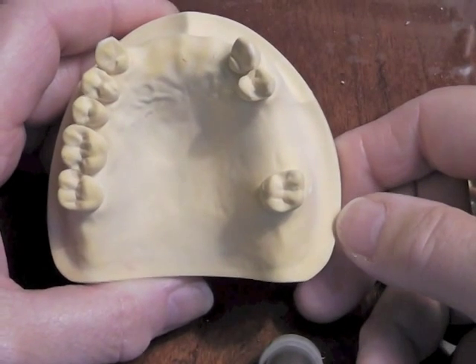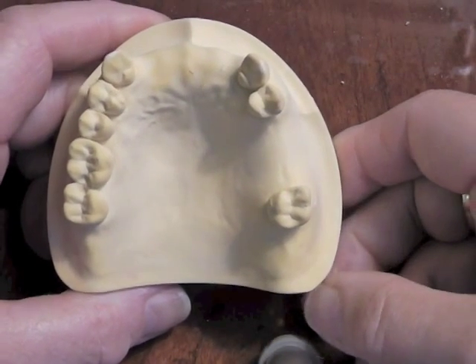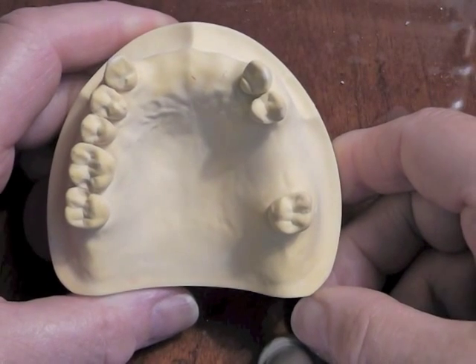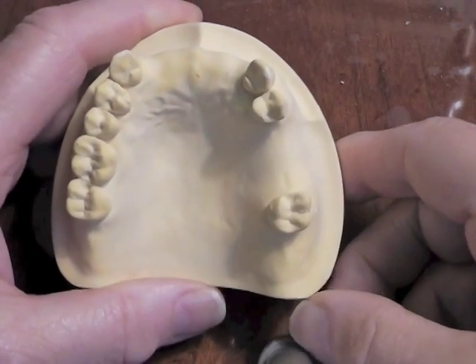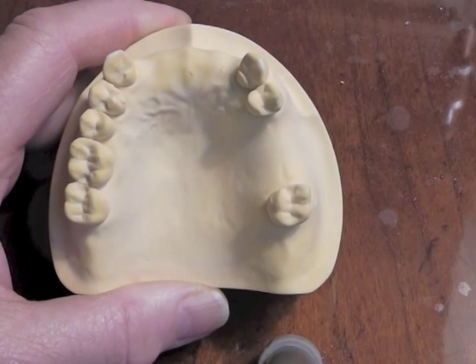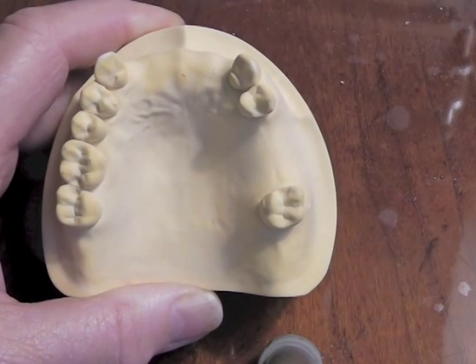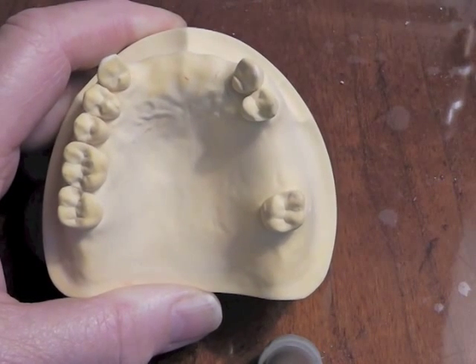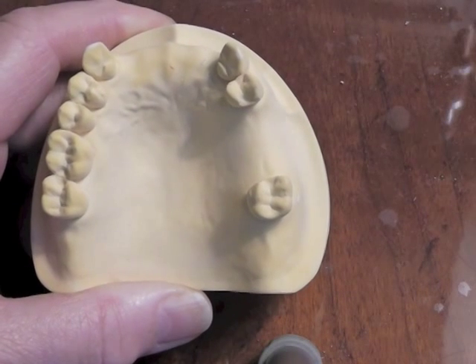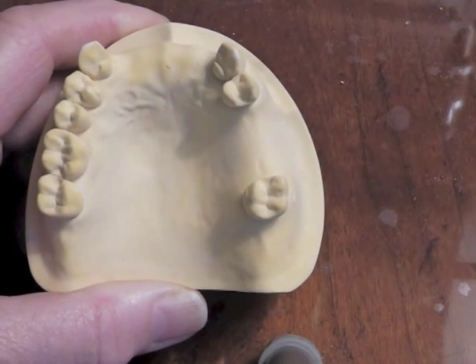This is a Kennedy Class III patient in a maxillary arch. We're going to design a partial denture for this patient. Let's look at this cast and think about some of our rules for Kennedy Class III and how we're thinking about this case, looking for a design that provides stability and retention for this partial.